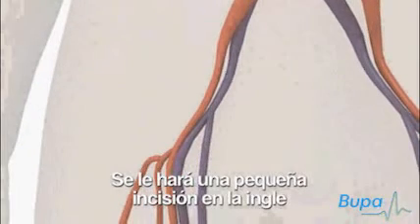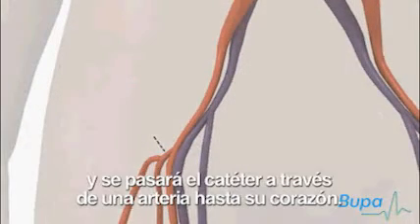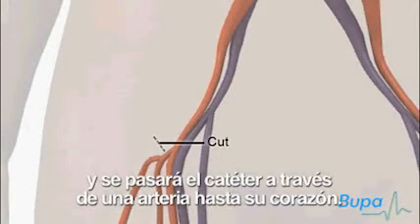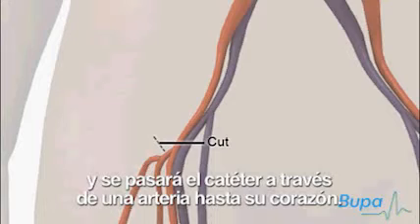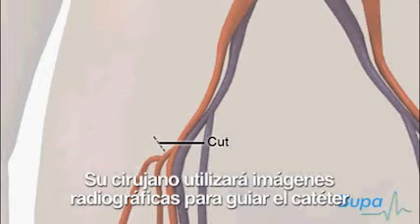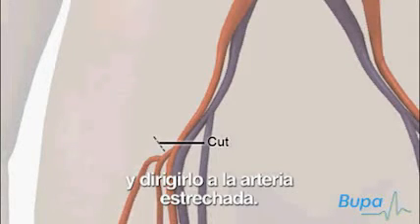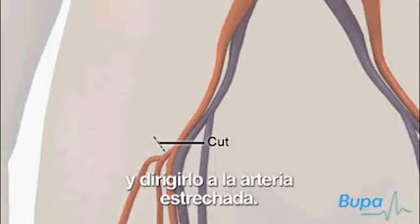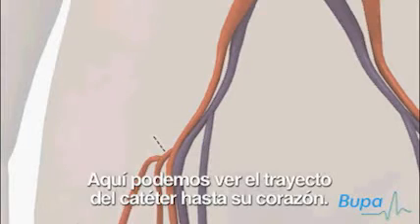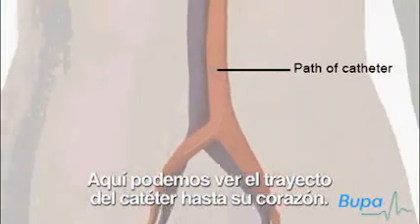A small cut will be made in your groin and a catheter will be passed up through an artery to your heart. Your surgeon will use X-ray images to guide the catheter and direct it to the narrowed artery. Here we show the path of the catheter to your heart.